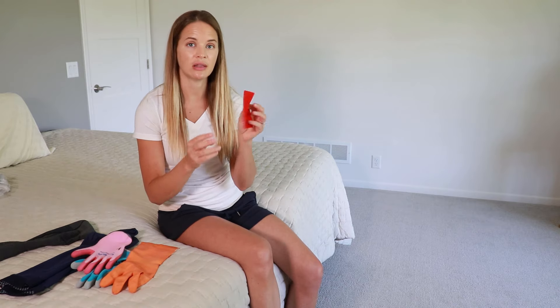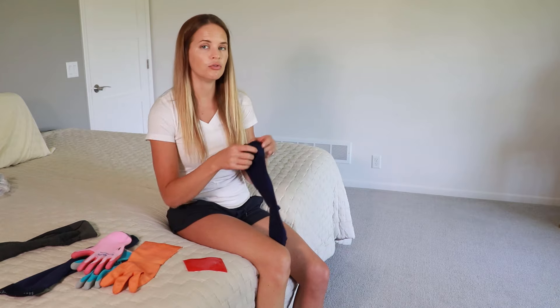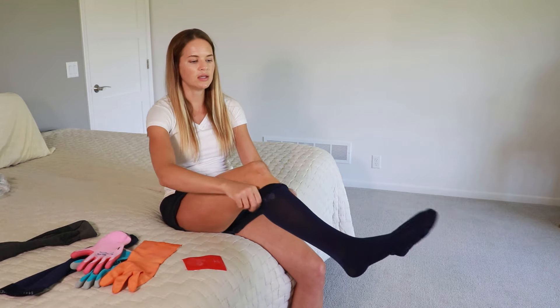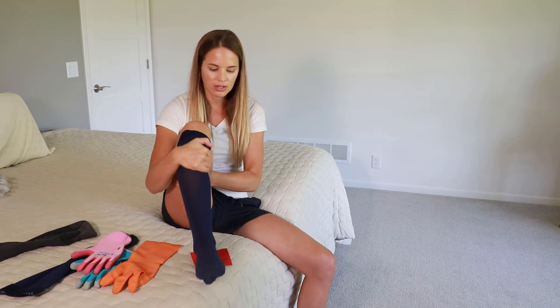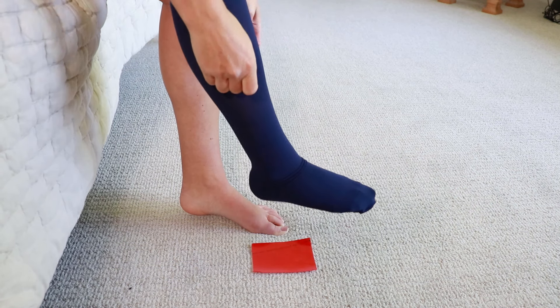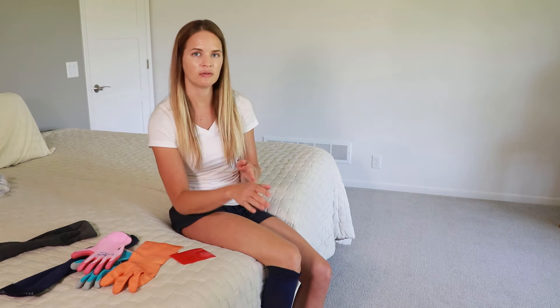Another option is something like Dycem, which is a little bit sticky and does a really nice job of gripping to a surface. You can put it on the ground and try putting your stocking on in one big pull. Pull the stocking on as far as you can, then place your heel on the Dycem and move it down to help pull the rest of the fabric up to your heel. This is a simple, cheap tool that's great for those who can pull on the stocking in a regular way but need a little assistance with the heel area.